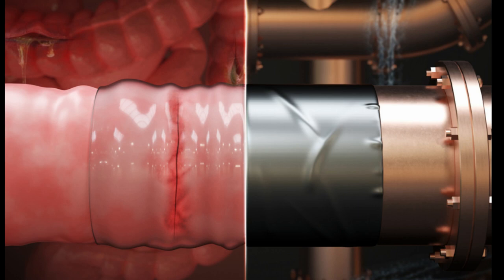Taken together, the experiments suggest that the surgical patch could potentially safely repair gastrointestinal injuries and could be applied just as easily as commercial duct tape.